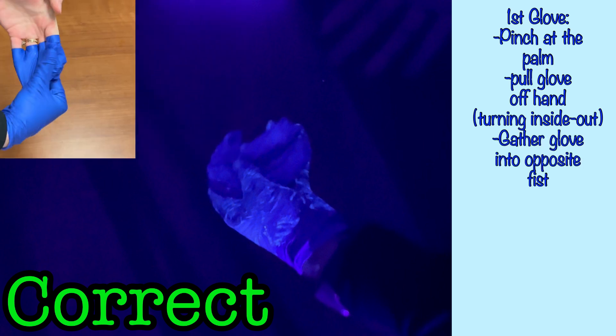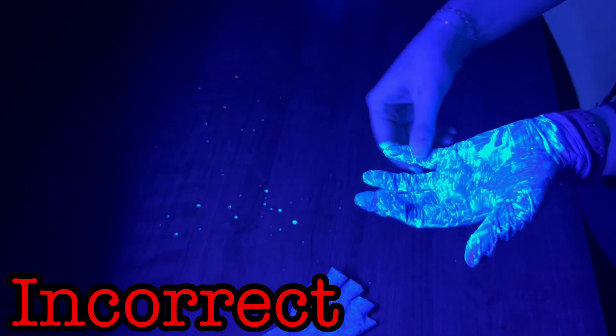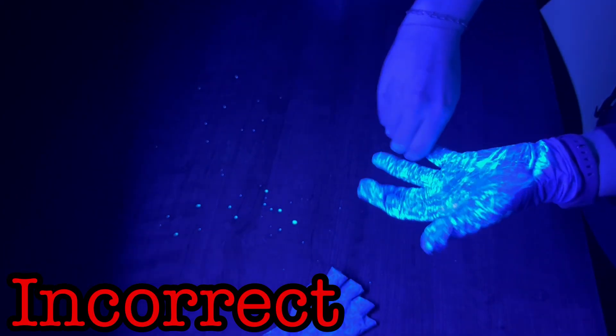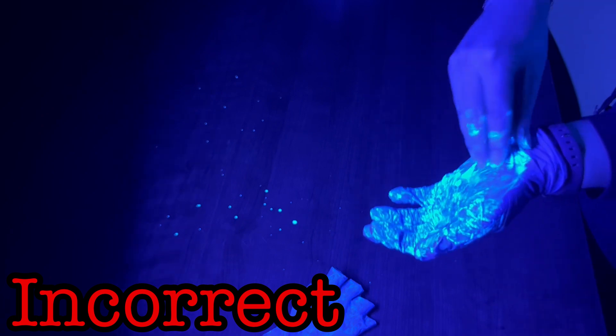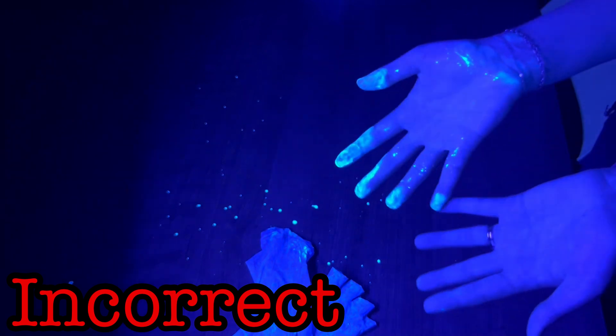Next, gather the doffed glove in the fist of the still-gloved hand. In the incorrect example, we saw the wearer remove the second glove by attempting to grasp the contaminated outside surface of the second glove with her ungloved hand, and in the process significantly contaminated her bare hand.